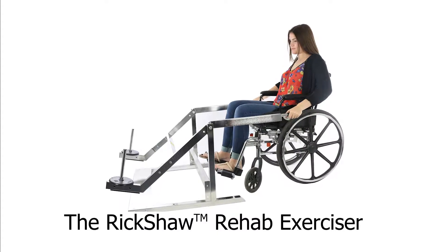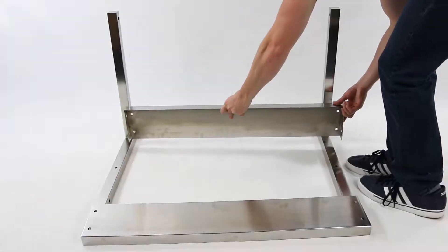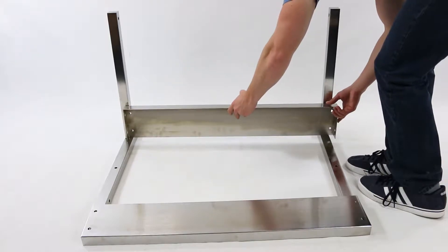The rickshaw rehab exerciser. To assemble the rehab exerciser, start by putting together the base.